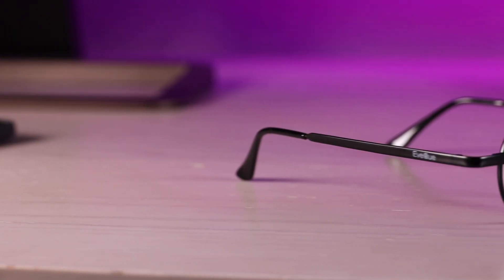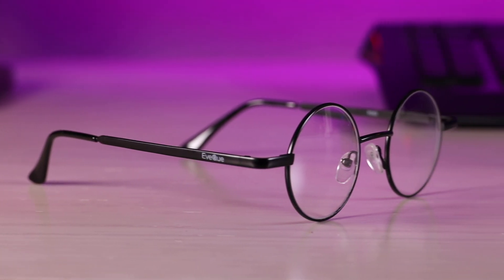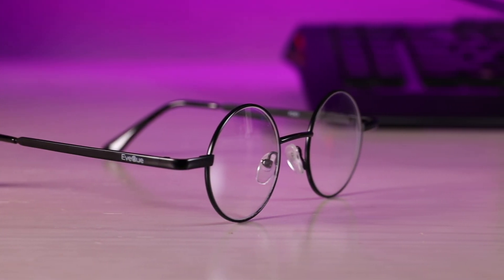With my vision results I was able to grab a set of try-on glasses. The cost of the try-on glasses is $19 and these are made in the U.S. and shipped directly to your door. These are not the glasses that I will eventually wear.